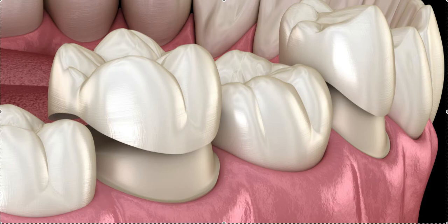So let's first talk about should you do it. Well, if it's a relatively easy case — like a simple Class 1 mild to moderate crowding or spacing — you should be able to bypass that tooth. When you submit the case, make sure you block off any buttons or attachments being put on that crown tooth. It shouldn't be a problem because theoretically, in a simple case, you don't even need attachments.